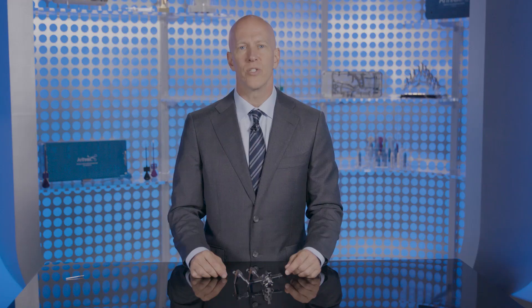As you can see, the mini joint distractor has several key features for surgeons to securely distract and compress during joint preparation. Thank you.